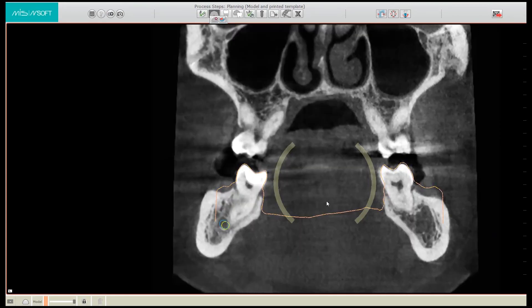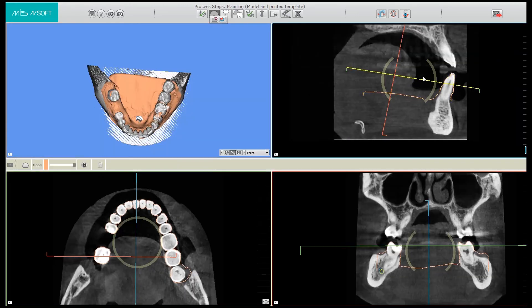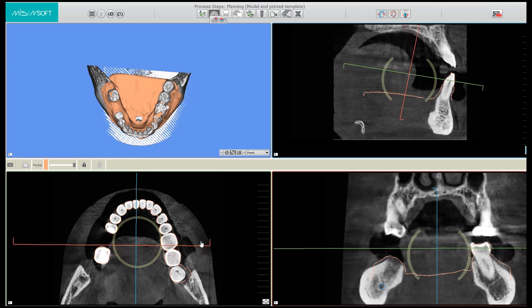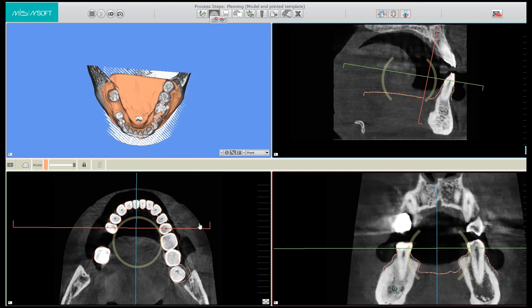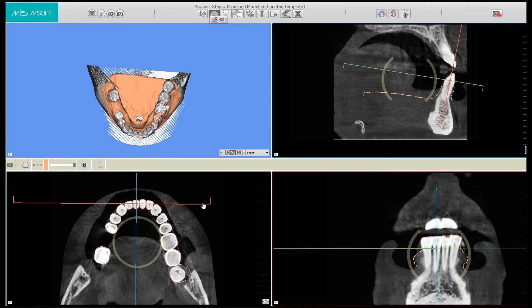In the lower screen here, we can see that the matching was done quite well. However, I feel it could be improved a bit, so I'm going to pull this down. I recommend that the STL should be within the borders of the DICOM. Let's hit the spacebar so we can see a zoomed out view. I use the activated areas to move them — using the left mouse button, I can either push, pull, or turn. At this point I'm satisfied with the matching. I can also take this red plane and move it forward to make certain that everything is done correctly. I can see in the front that everything is seated perfectly.